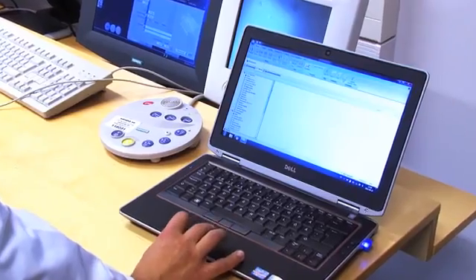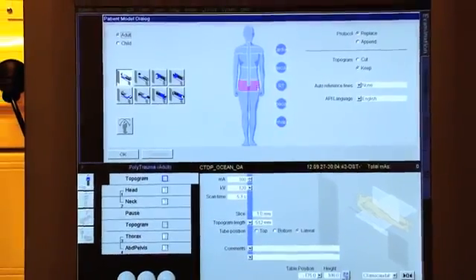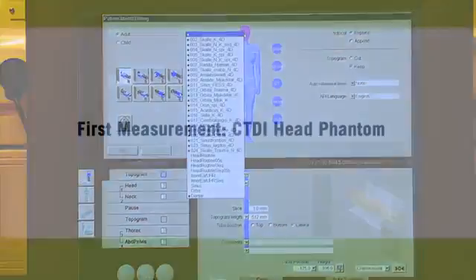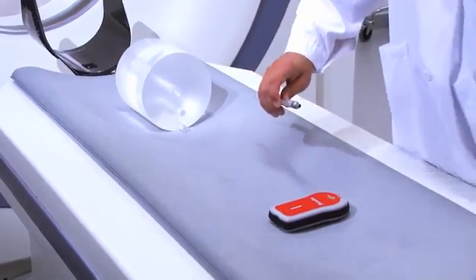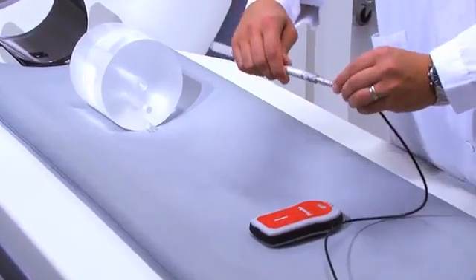It is important that you know how your CT works and what parameters you wish to measure. First, we have to set up the phantom and insert the detector.